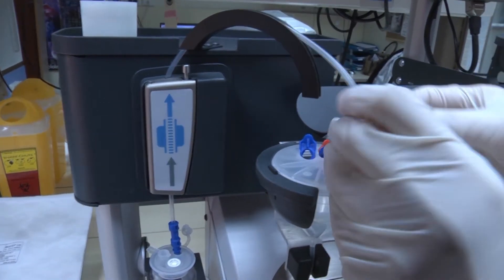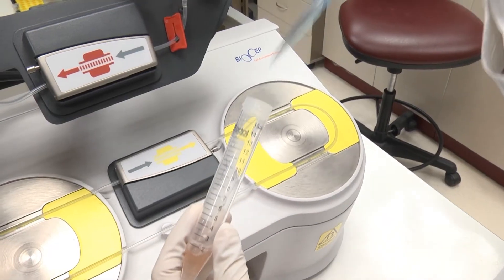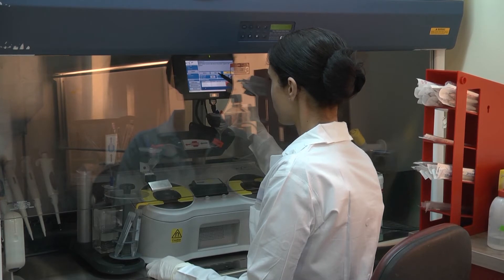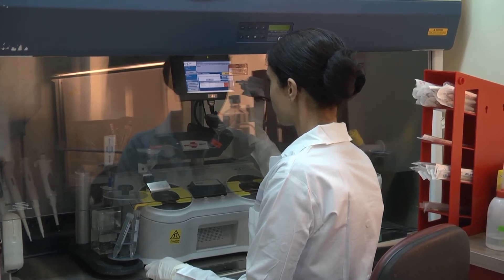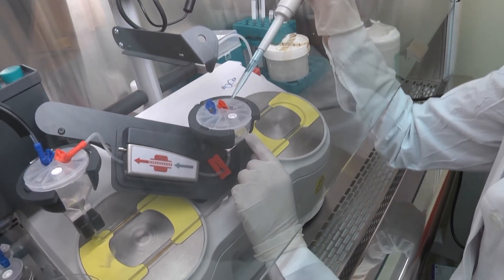The kit is specially designed to ensure ease of use and optimal flow. Once the kit and buffer bottle are in place, simply load the prepared specimen. The SAPIR is designed for work in a laminar hood or on the bench. When working in a hood, the specimen arm can be lowered for easy access.